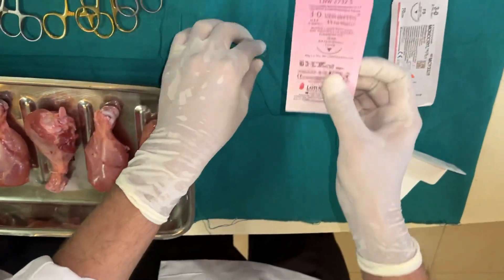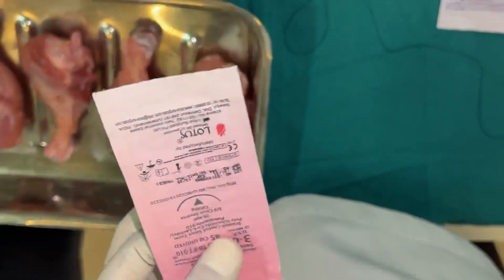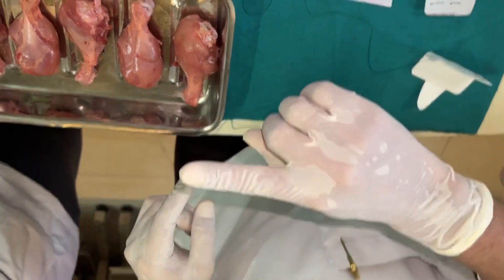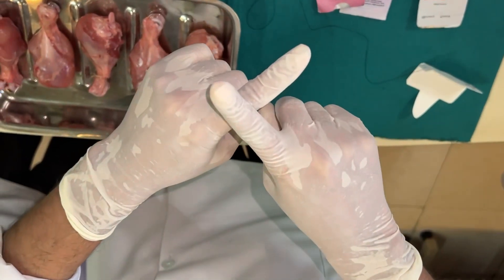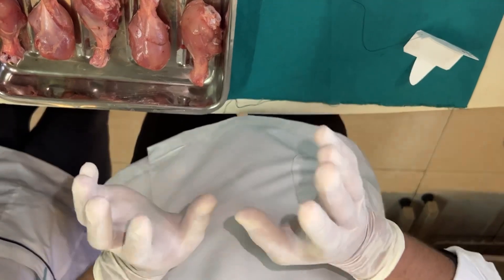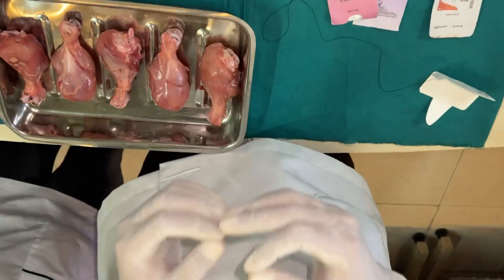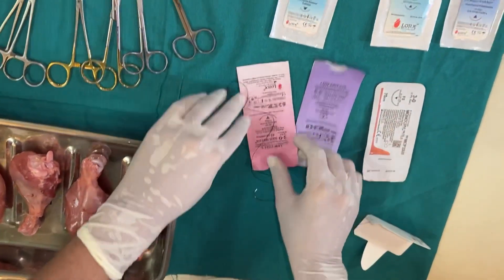We should always use an atraumatic, swaged needle. The needle is also described as 3/8 circle — slightly less than a half circle. A straight needle, like one used to sew a button, would penetrate the opposite tissue in the confined space of the oral cavity. Studies show that 3/8 curvature is easiest to penetrate and retrieve even in posterior areas.